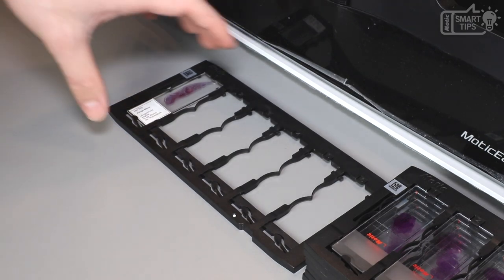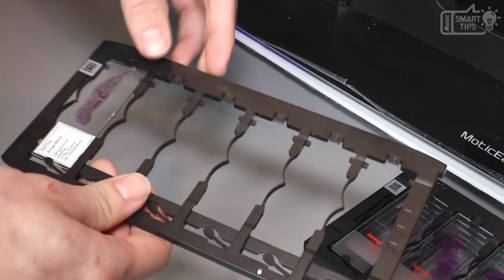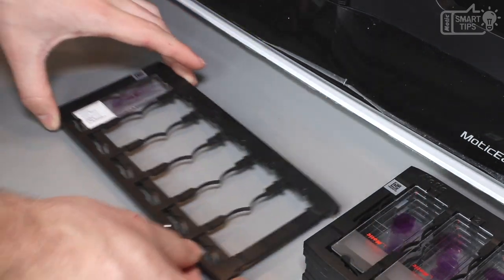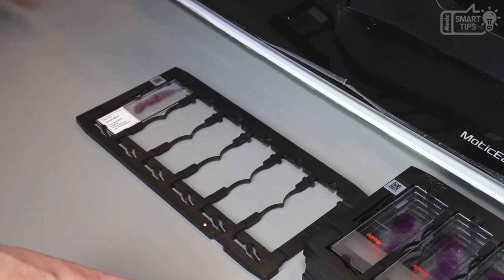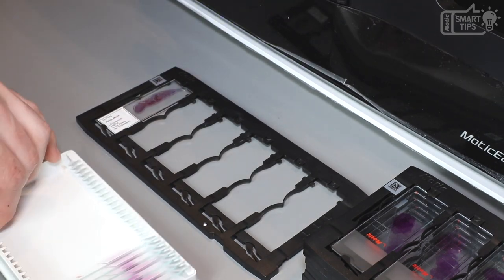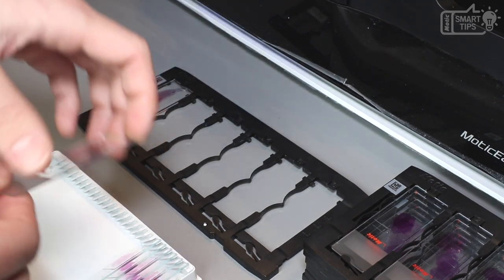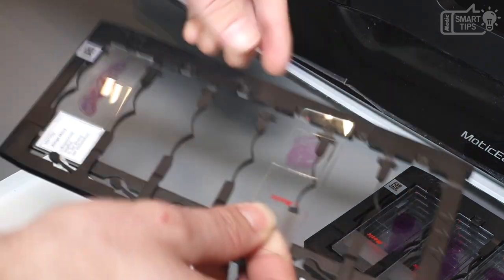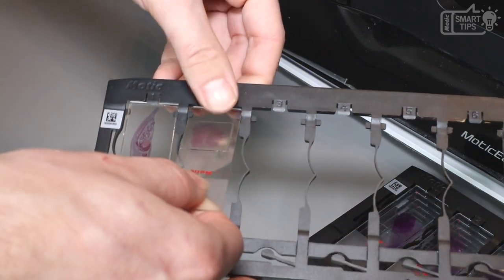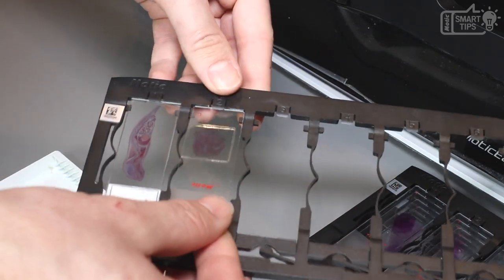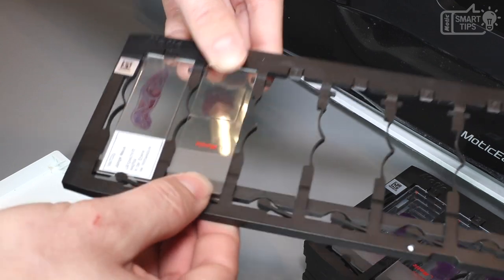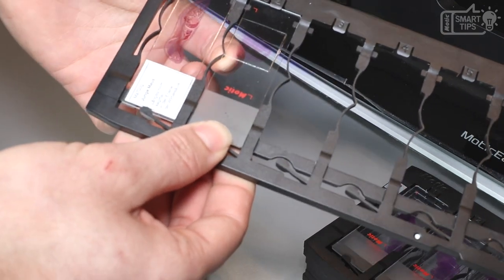Okay, so the first step would be to load the slides into the tray. I've got a pack of different slides here and I will show you how to load them. The first step for doing this would be to insert the slide just like this with an angle and now you can press down.